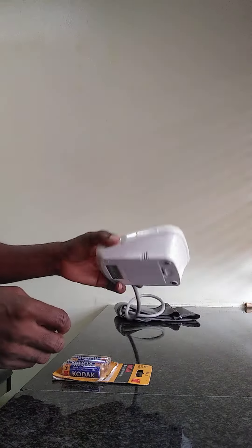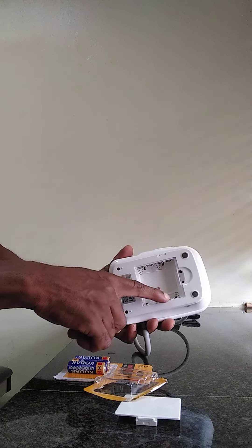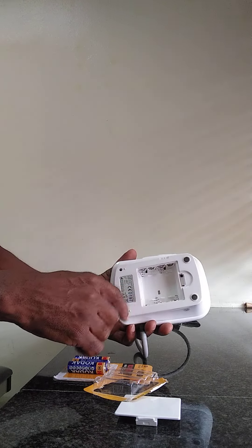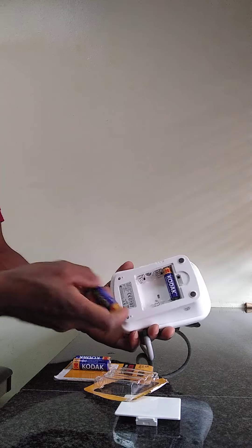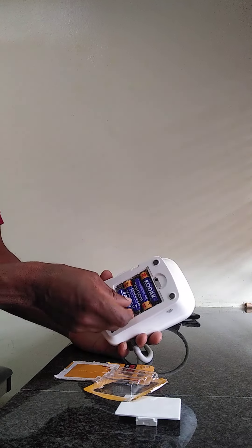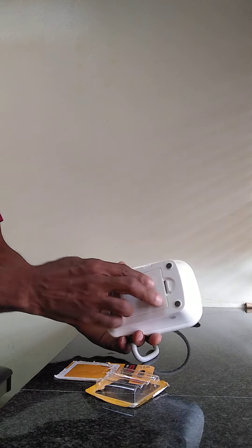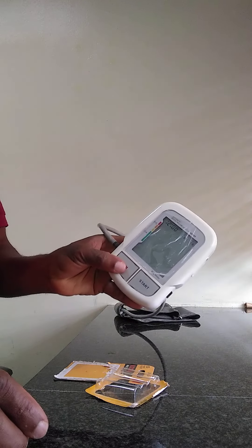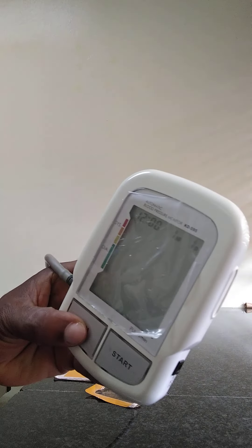This is the monitor. So you open the battery compartment and insert the battery accordingly. The battery has the springs this way, the opposite side. And then close it — as you can see, it is activated now.